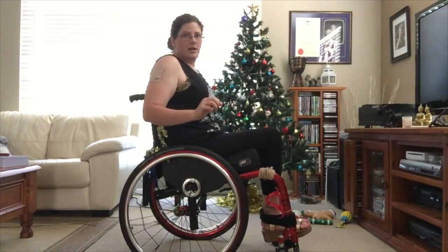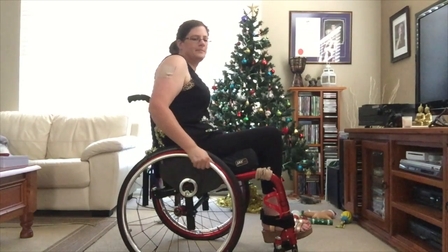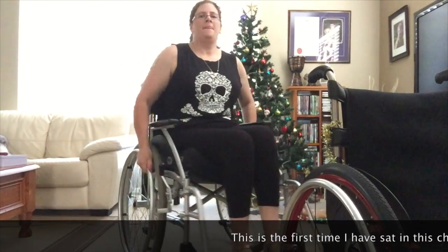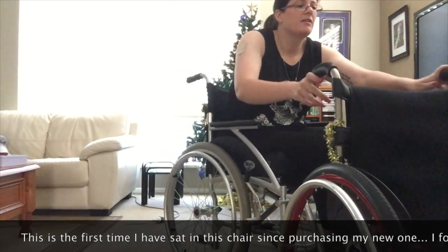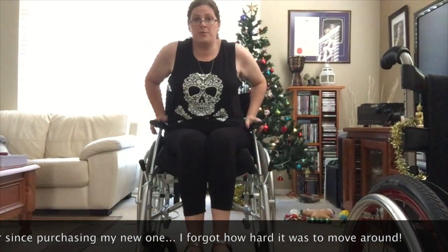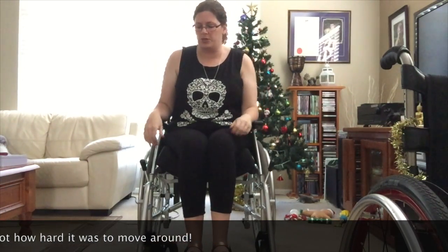In a moment I'm going to bring my other older chair up and show you how different it is and how hard it is to push efficiently. So this is my first wheelchair — it was about $450 plus the original cushion. Although it has big wheels, it's actually more designed for you to be pushed around than to push yourself. It's not set up for self-propelling at all.